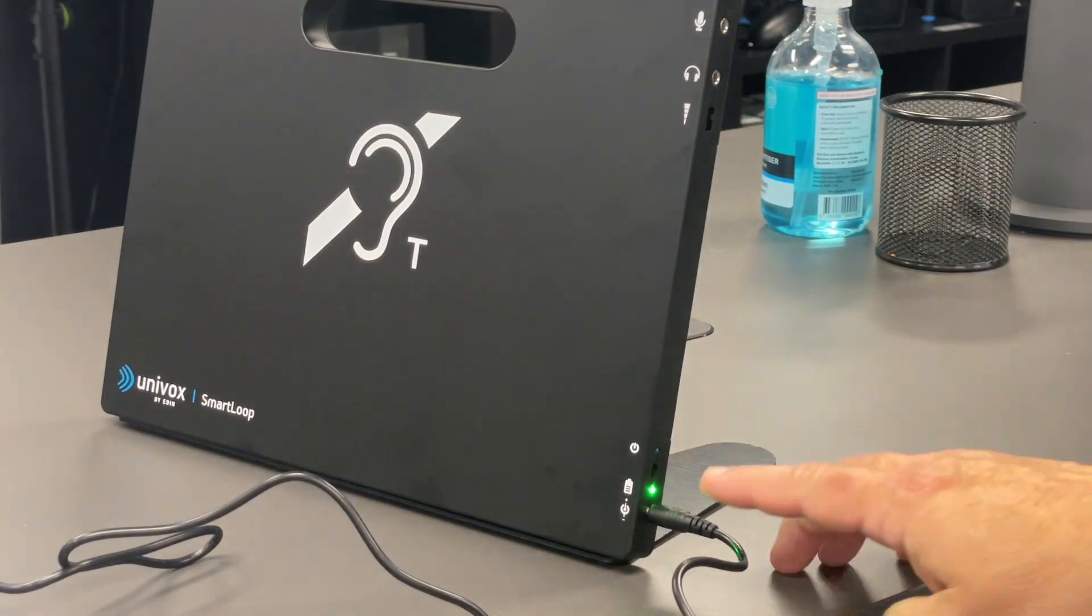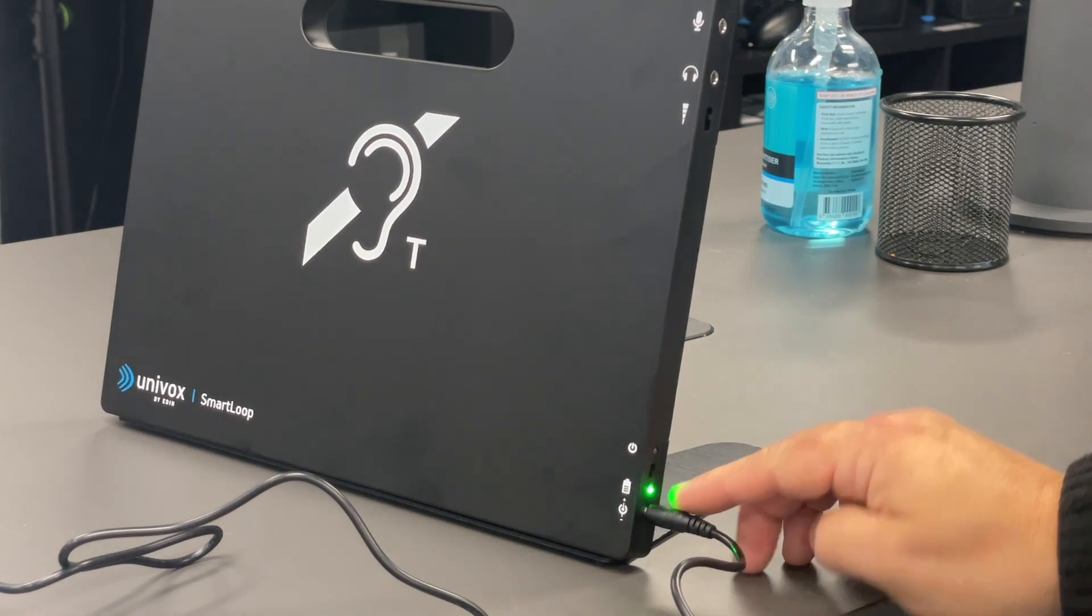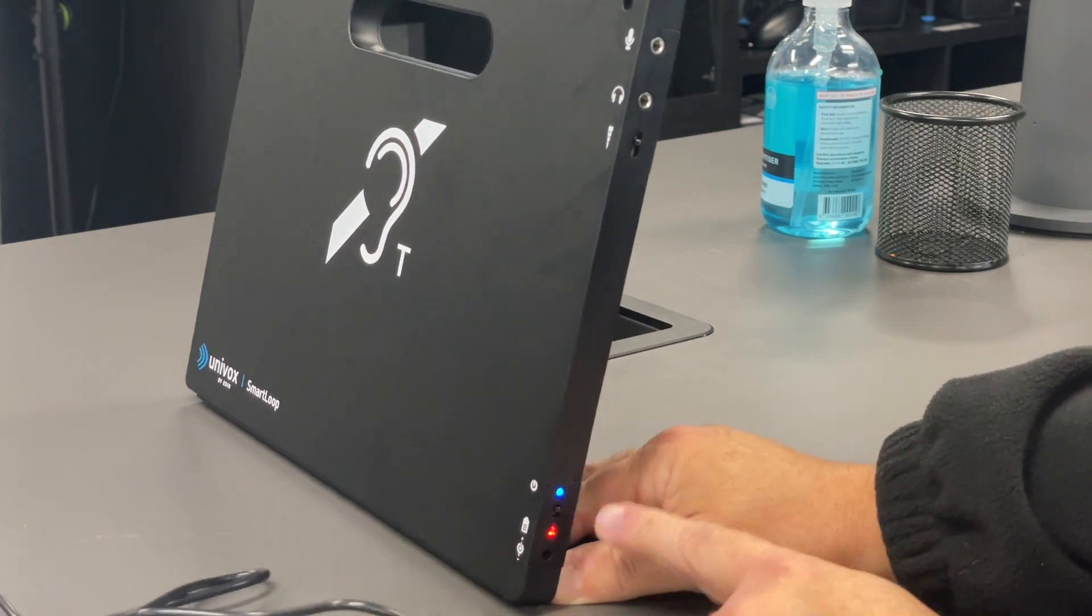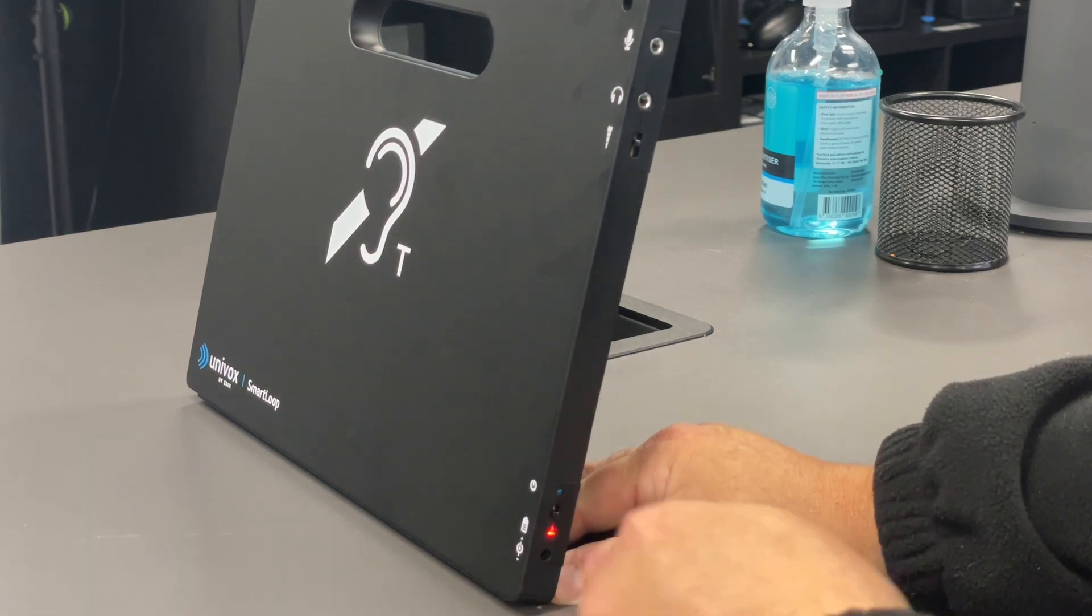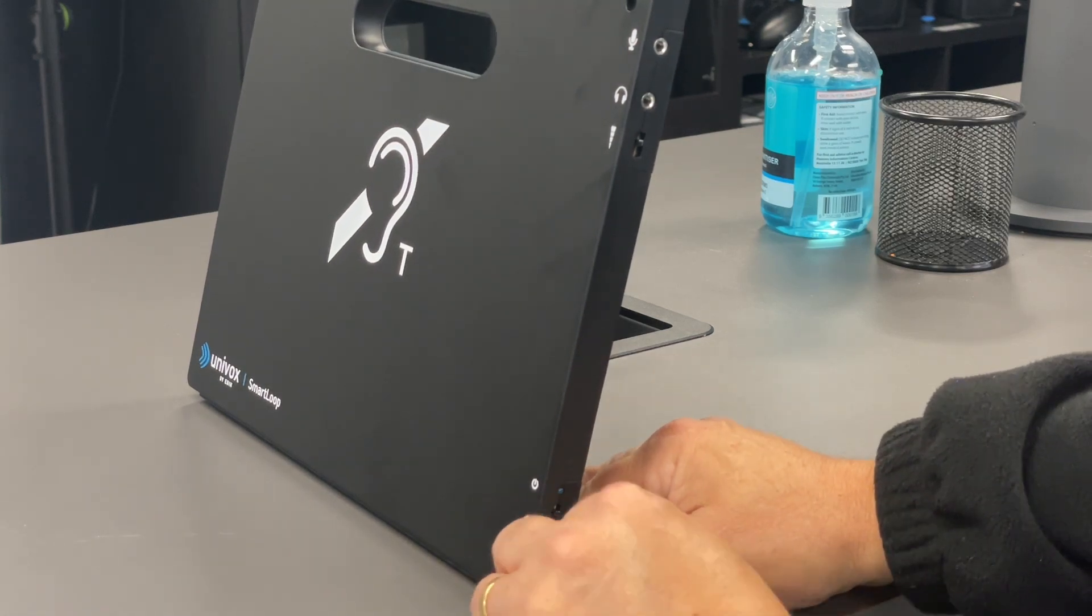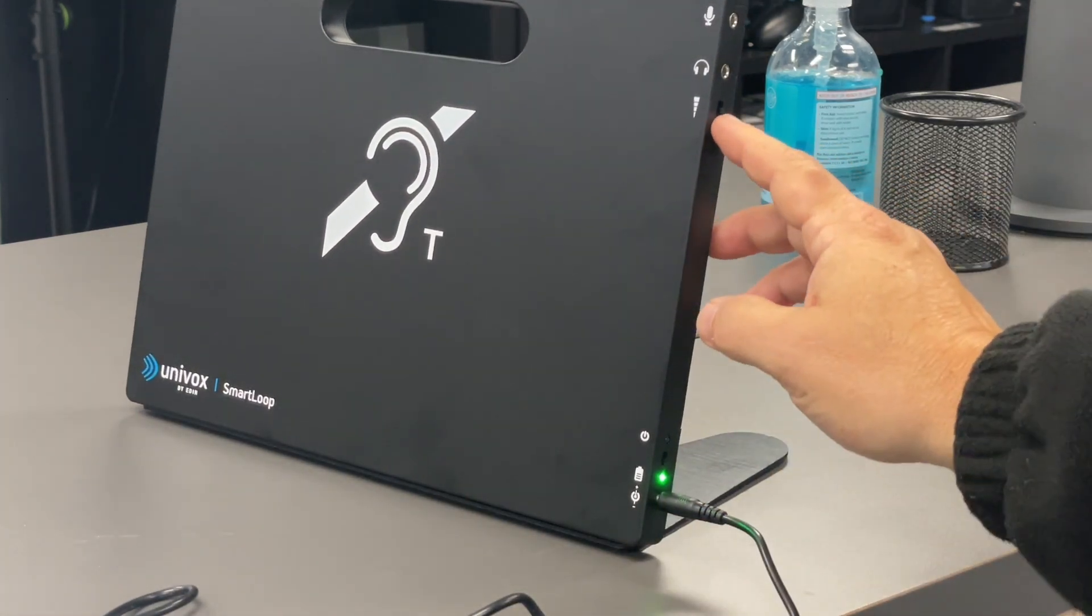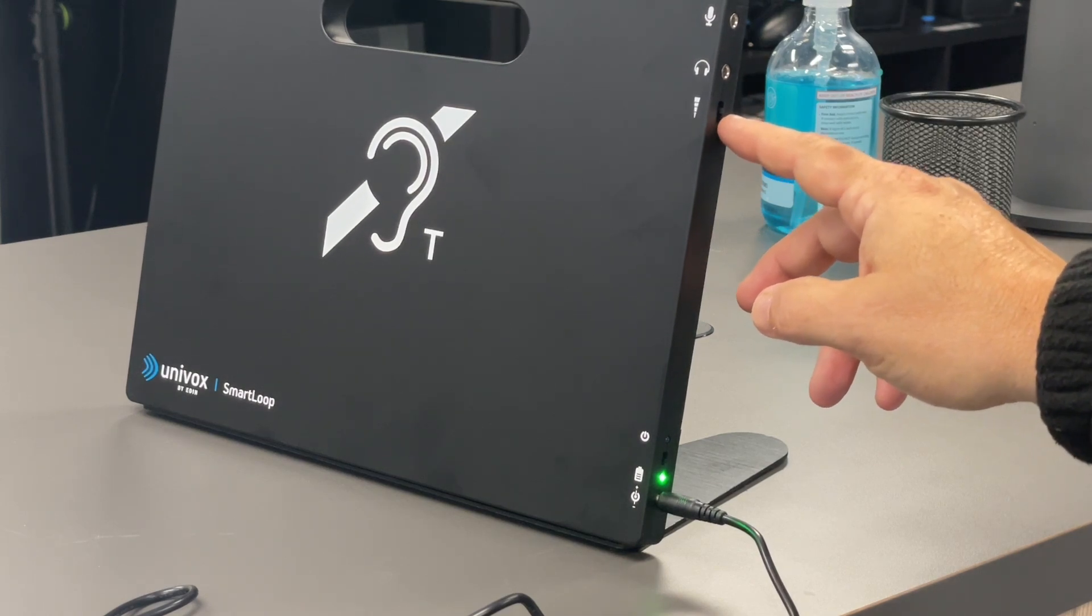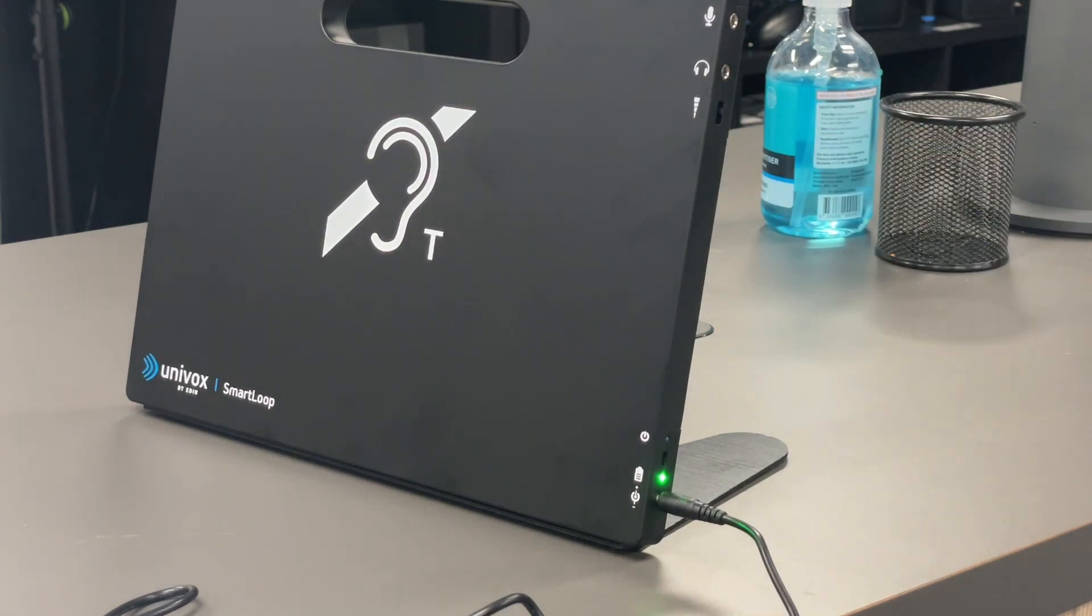You may choose to fully charge your unit and only turn it on when required. Turning it on will show a blue light. This is a volume control that adjusts the volume for your client's hearing aid. I've already set it quite high.